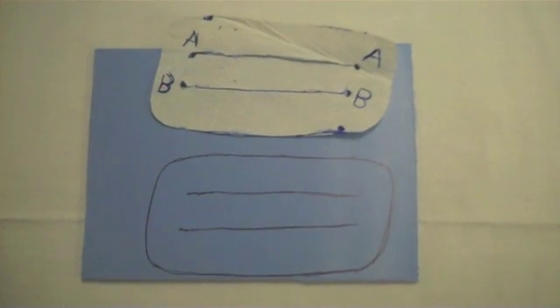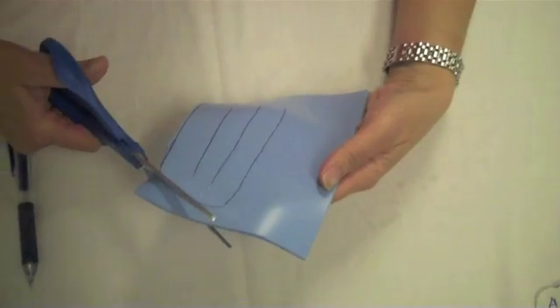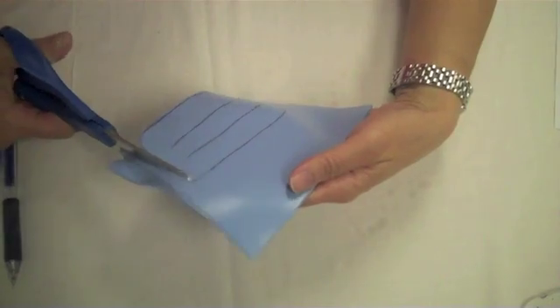Make a line connecting the two B's. Trace the pattern onto the easy form material. After the material has been heated, cut out the pattern.